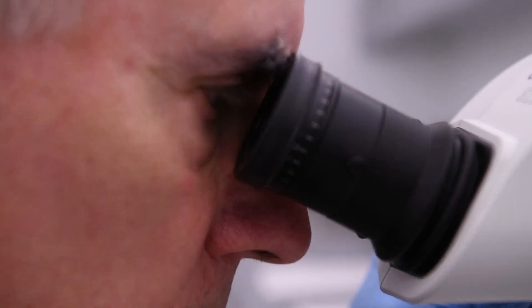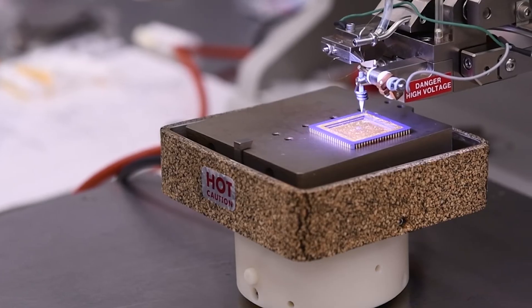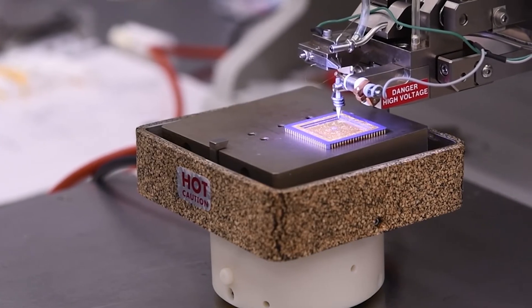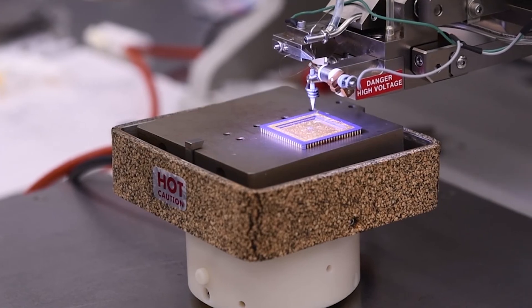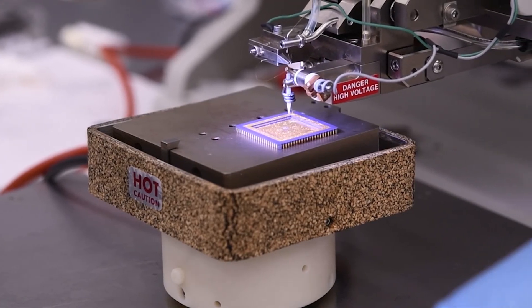Transducers are the devices that hear the sound and send the sound. What we did here was to make quantum leaps in the development of those technologies that then enabled us to develop the imaging tools.